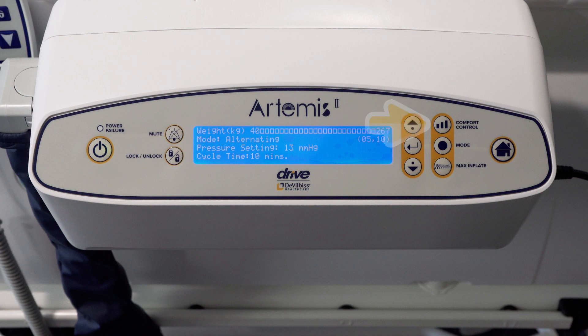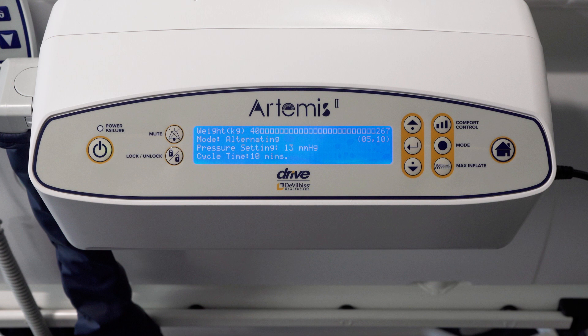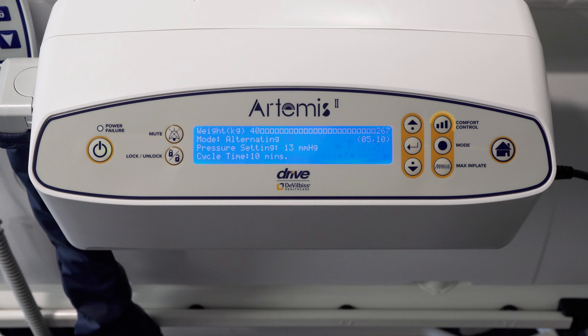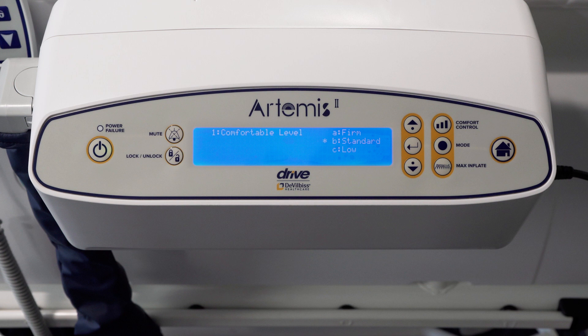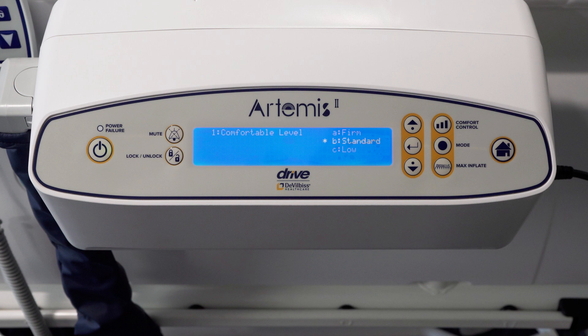This is a safety mechanism to ensure patients are not left on an over-inflated surface. The comfort control allows optimum comfort for patients without compromising on performance. Please use your clinical judgment when changing any of the pressure settings. Press the comfort control button, then press the up or down button to select the setting, then press the enter button. There are three available comfort settings: firm, standard, and low. Should the pump be turned off for any reason, it will always return to its default setting of standard.